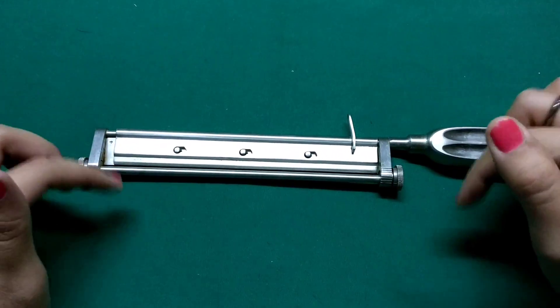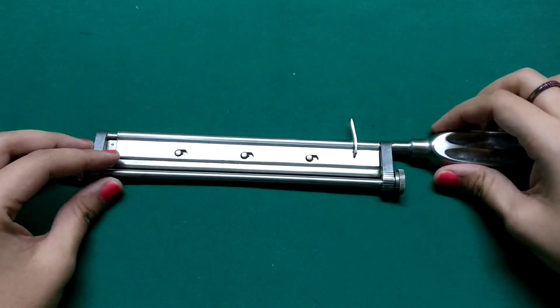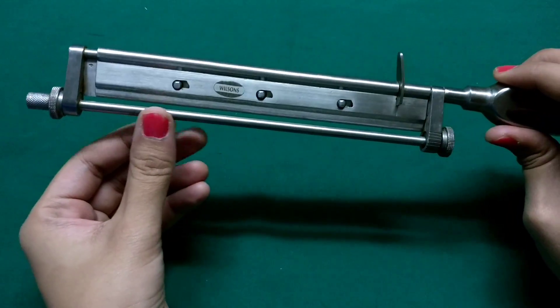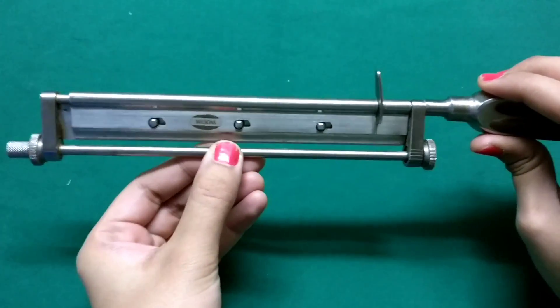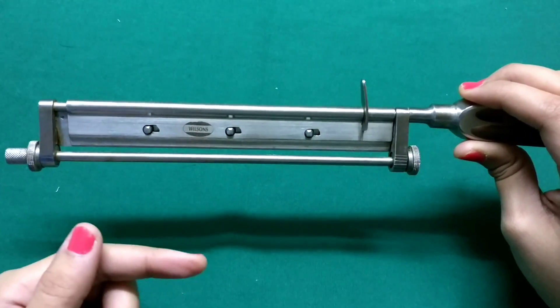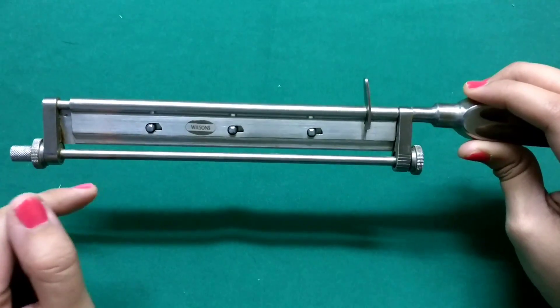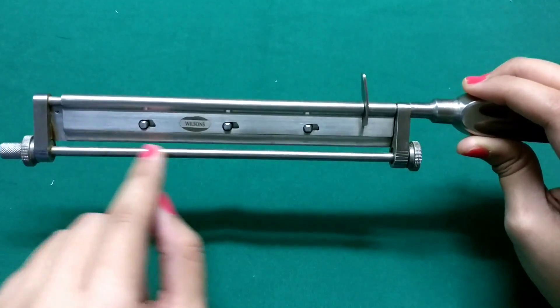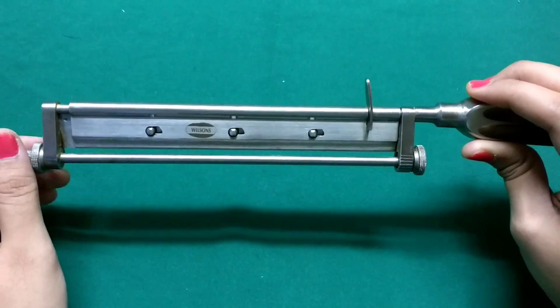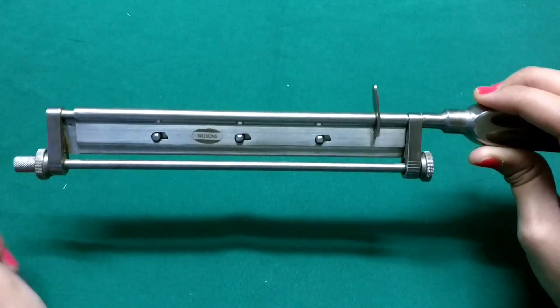The rectangular frames have been discarded from the new model and after that there was a Braithwaite modification in which this limb used to be a rolling limb and it would roll all along while you were harvesting a graft. But then came Watson's modification of a Humby's knife wherein this limb has been converted into a static limb. So it's better in eliminating the drag while taking a graft and it gives better stability.